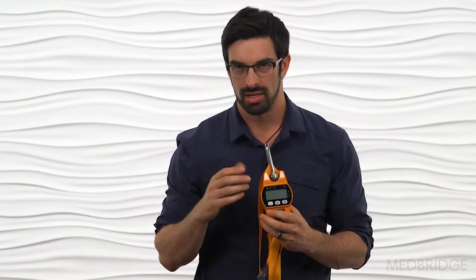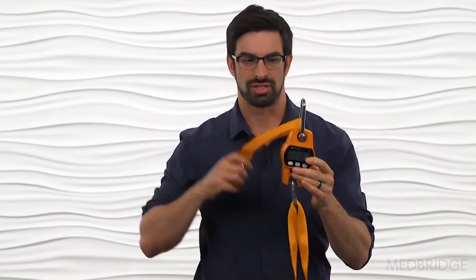The next unit — my favorite — is only about $50 online. It's a crane scale. You can turn on the value, attach a mobilization belt or lashing strap to the bottom and a strap to the top as well. You can put it on hold to lock in the value, and as you pull down on it, the value increases. It gives a reading in kilograms or pounds, locks it in, and is a very reliable intra- and inter-tester way to test the true MVIC, or the strength of a muscle.